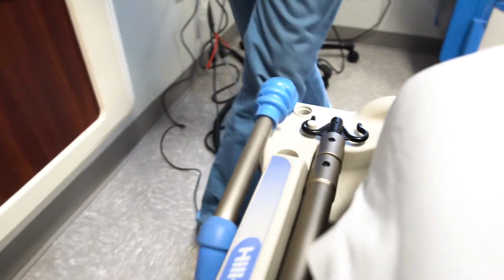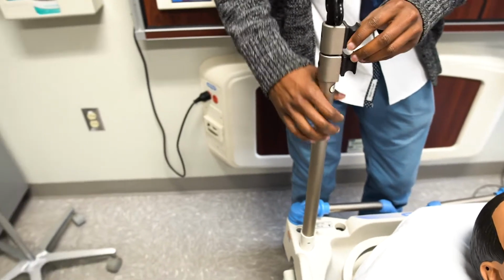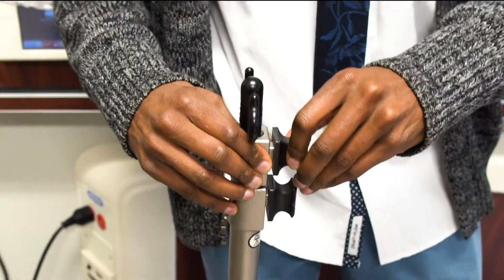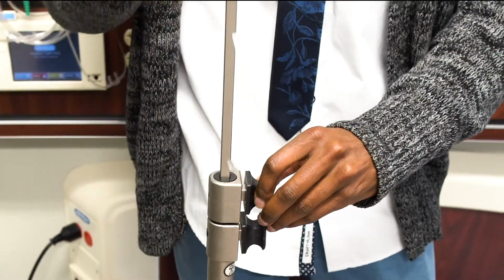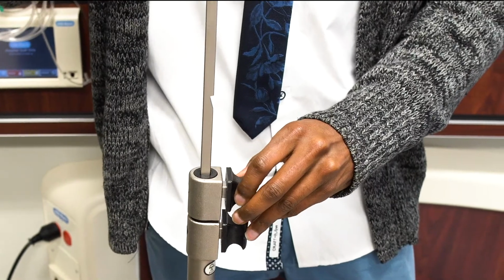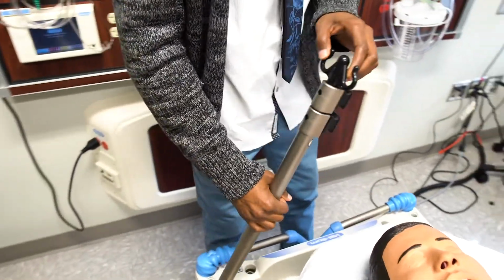To access it, just lift it up like so. To extend it, just pull out and hold the black tab, then lift up the stem. Once you're happy with this height, let go of the black tab and let go of the stem. Then to put it away, just pull out and hold the black tab, push the stem in, lift up on the IV pole, then lay it down like so.